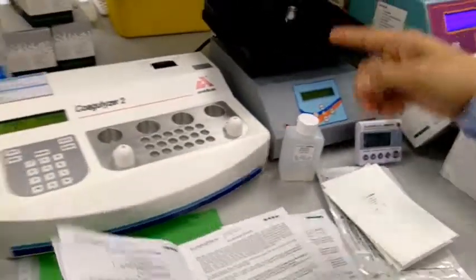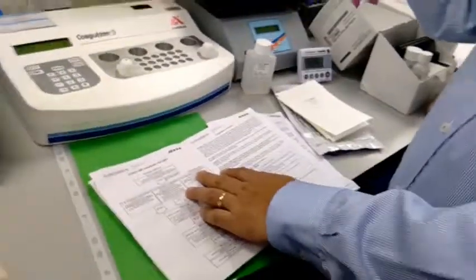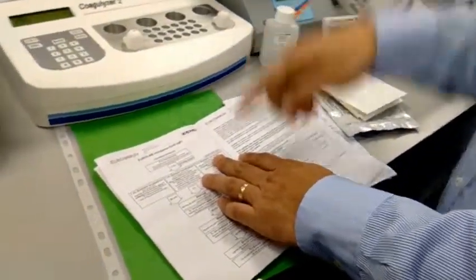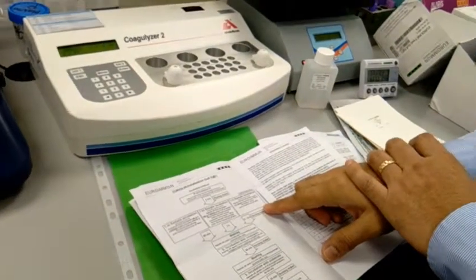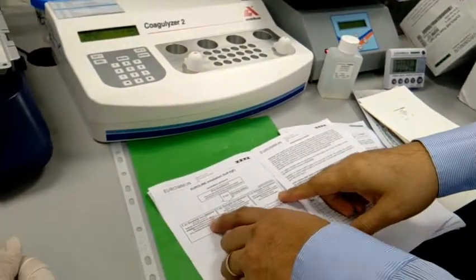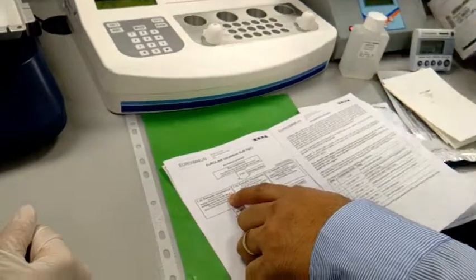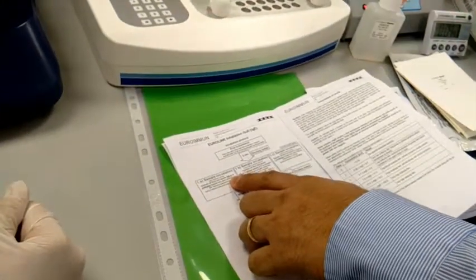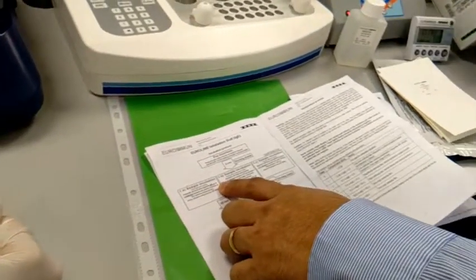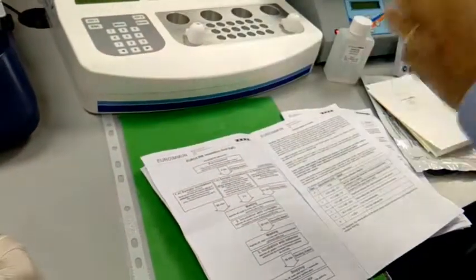Then after 5 minutes, we have to aspirate the working solution there. And then we have to add the sample patient. So we have to put 400 microliters in the first well, 400 microliters on the second well, and then third well, 400 microliters respectively for the patient sample.